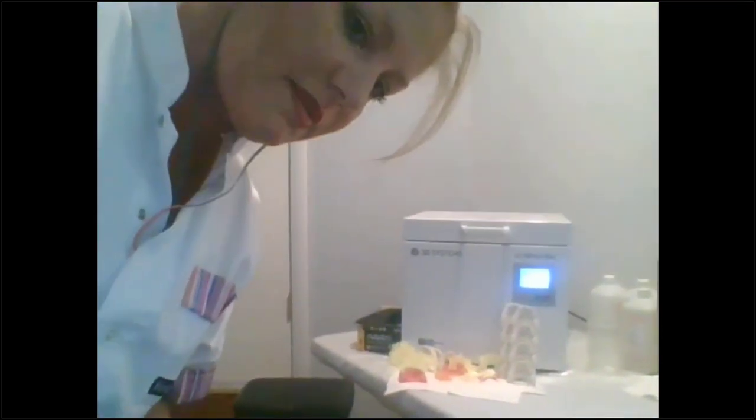Okay, Adrian, can you show the stacked print that you've already created? Oh yeah, sure. So let me bring my system over here. Now I did take some of them off the build platform, but I do have the stack sitting here. You can probably see. I'm going to grab some gloves because I haven't cured them yet.